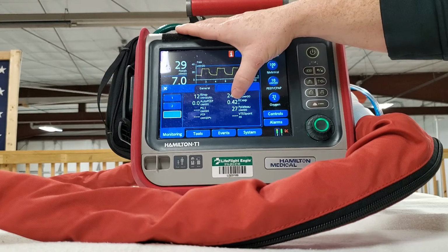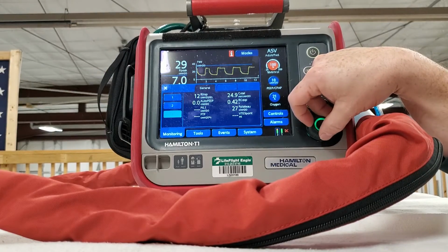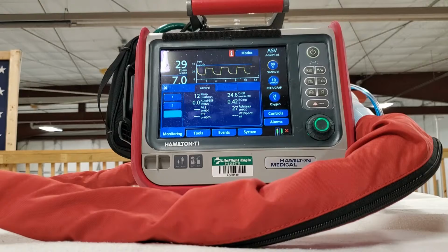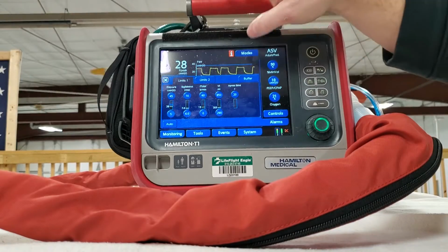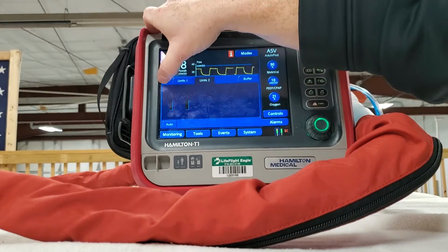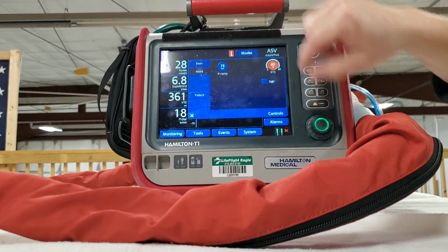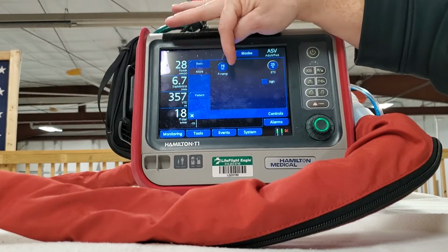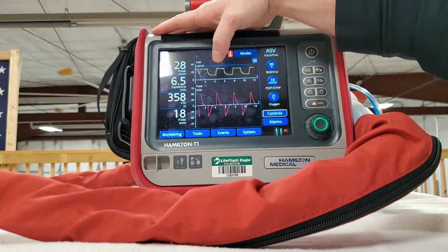So if we do this here, because traditionally with the COPD asthma patient, we're going to set it about 90% and see how that changes. We go to controls. And let's change that back down to 25%, I believe. See how this P ramp is shorter? It's giving all that air a little bit faster. It's something you ought to probably consider changing immediately.